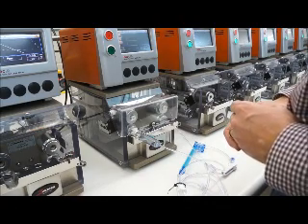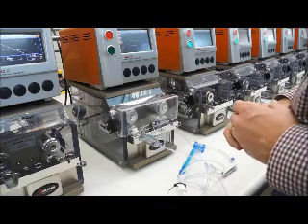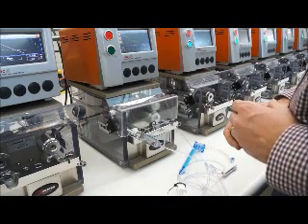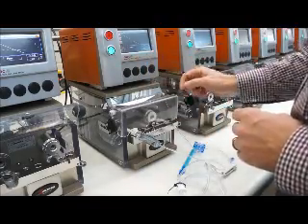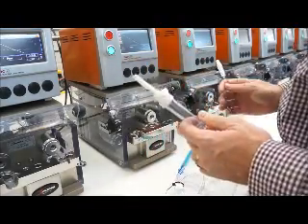We're doing a leak test — this is a good part. At the end of that, we will do an occlusion test. We get it green-lighted as a good part, and we're ready to remove the part and move to the next.